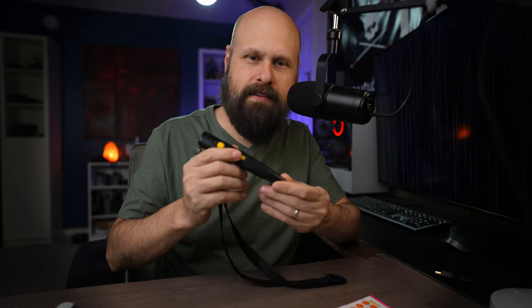You record audio labels with the Pen Friend, and when you scan the little stickers, the Pen Friend will read them out loud to you. I say that this is the OG assistive technology device because this thing has been around for a long time, and it is beloved in the blind community. A lot of people speak very highly about the Pen Friend with good reason — it works really, really well.